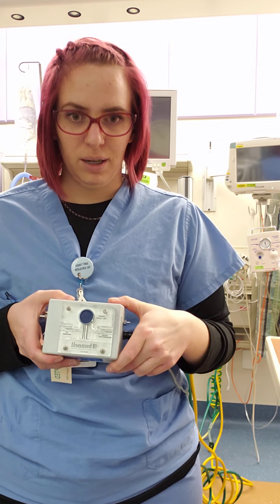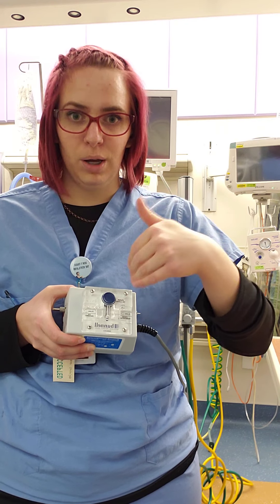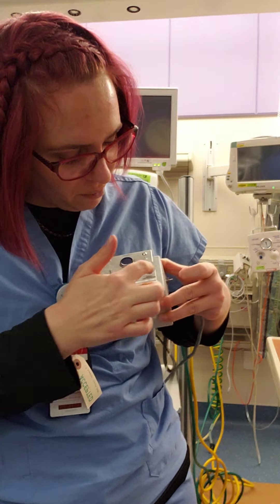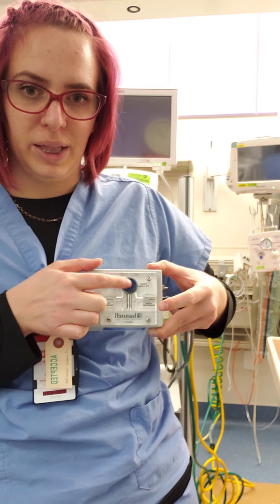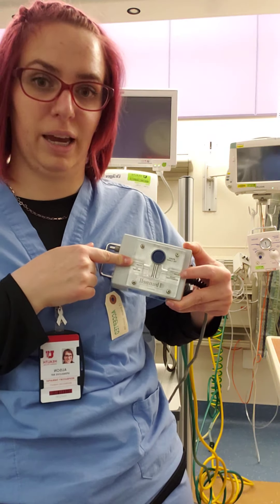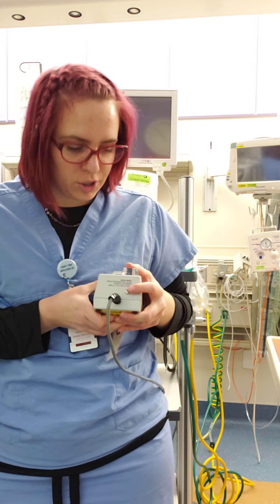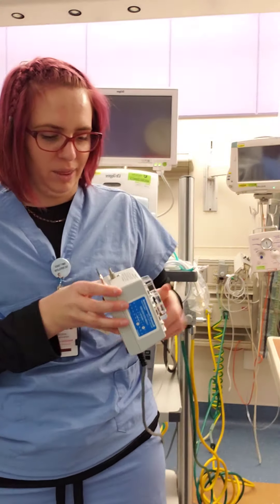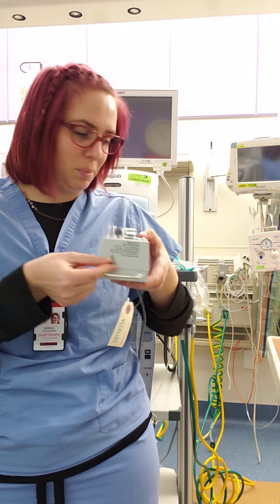Essentially we're getting a continuous flow and we're interrupting that flow in order to give that high frequency. You can see we have our flow continuing from the humidifier to the patient, and this button allows you to feed through the device that does high frequency. Over here on the back is called the purge, which I will show you when we set it up and how that goes into play, and then we have where we actually feed another gas to our patient.